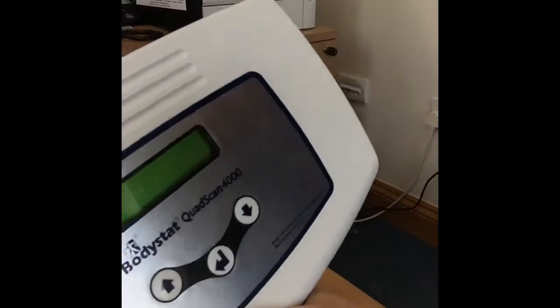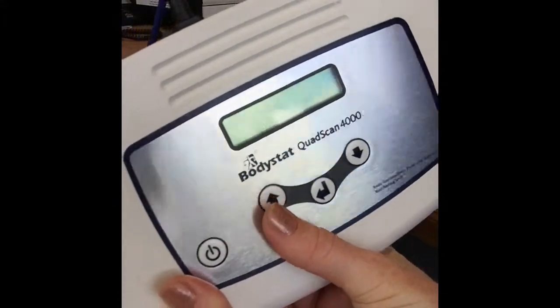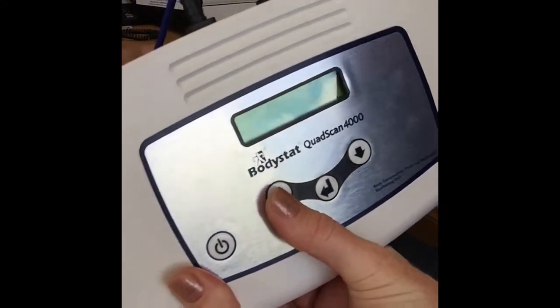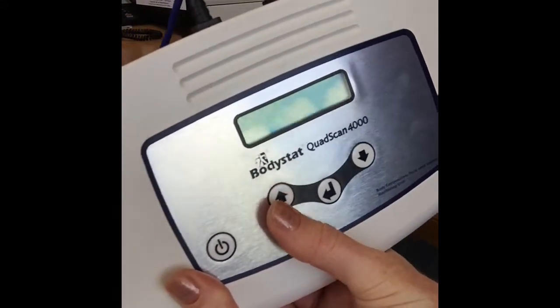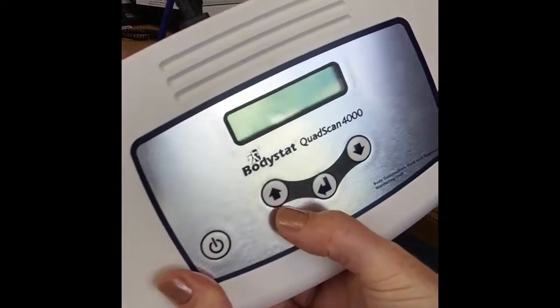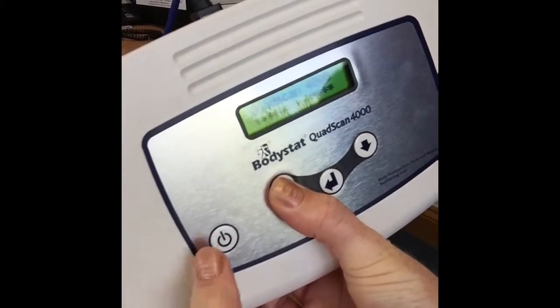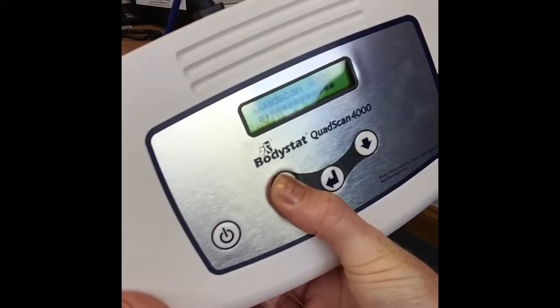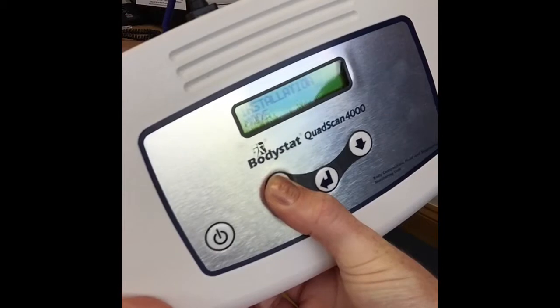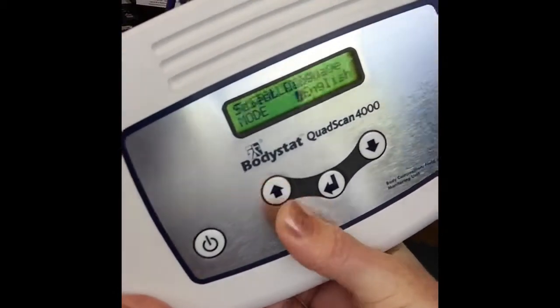To get into the installation mode you need to have the unit switched off. When you switch on the unit, hold the up arrow key down, switch on the unit, keep holding that up arrow key down until you see installation mode.